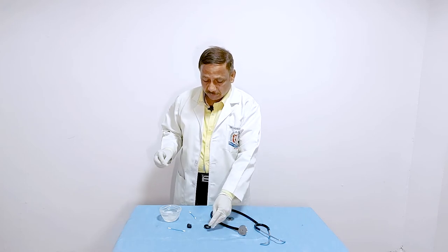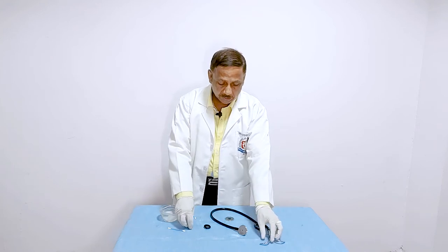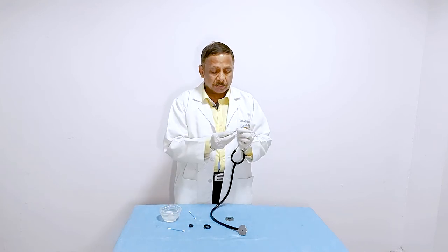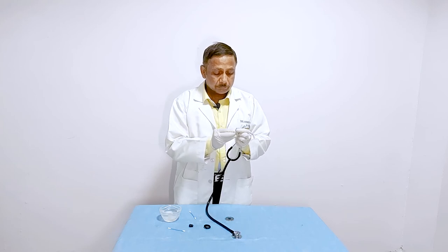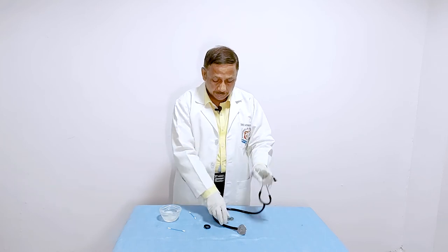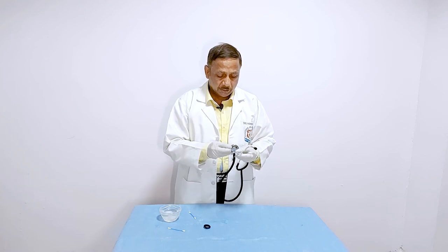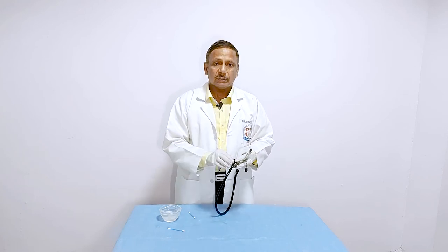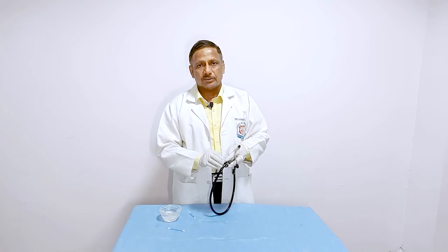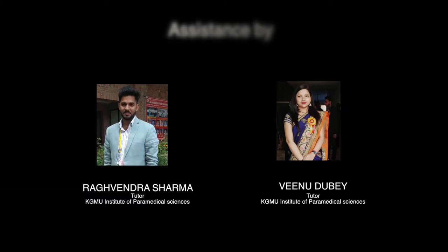You keep it to be dried in the air, and after it has been dried, you reapply the earpiece, reapply the diaphragm, and then reapply the ring of bell. That is how you clean a stethoscope. It is important to note that the stethoscope should be cleaned at least twice a day during COVID season.